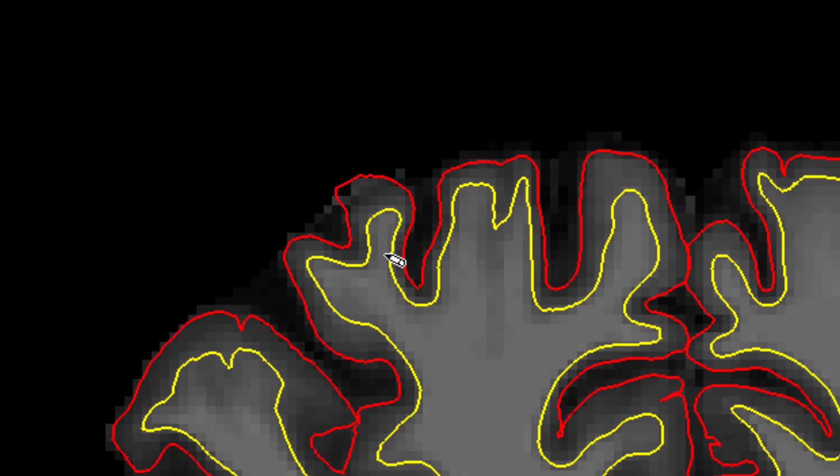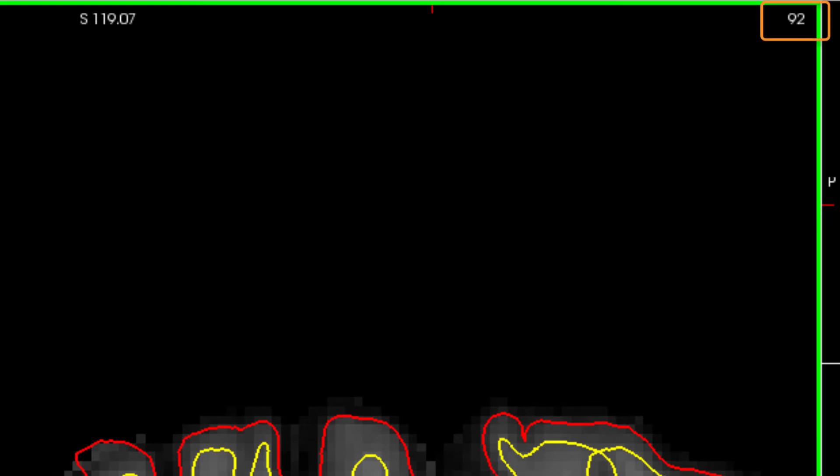First, note the slice where the problem begins and where it ends. In this case, I've chosen slices 92 to 106 to bookend my edits.